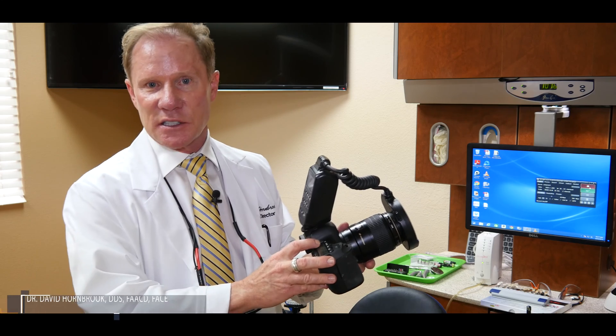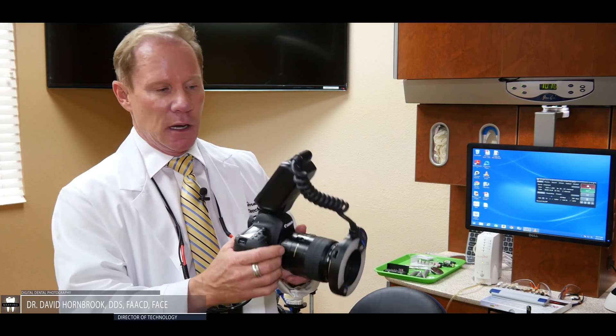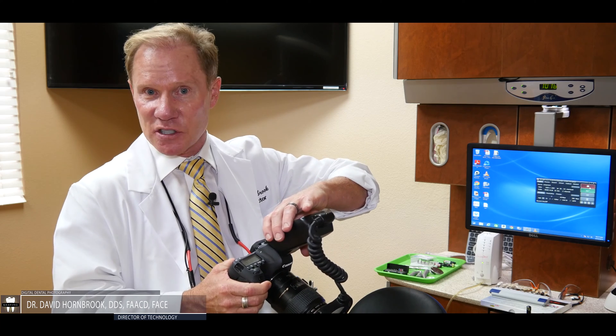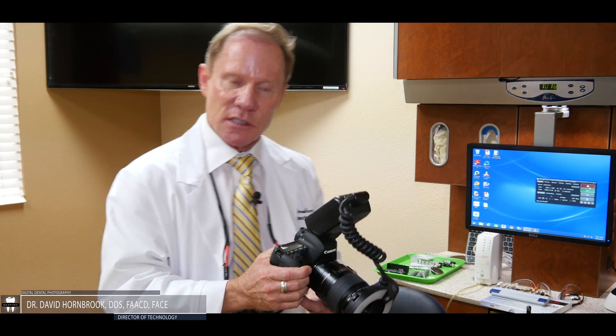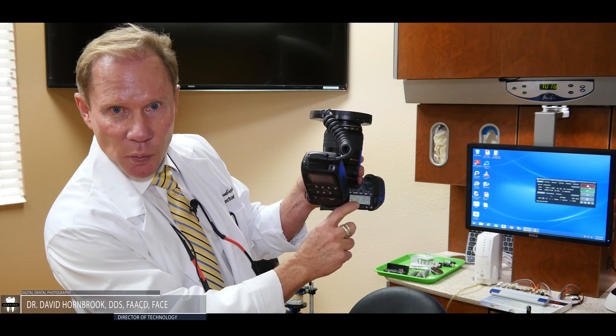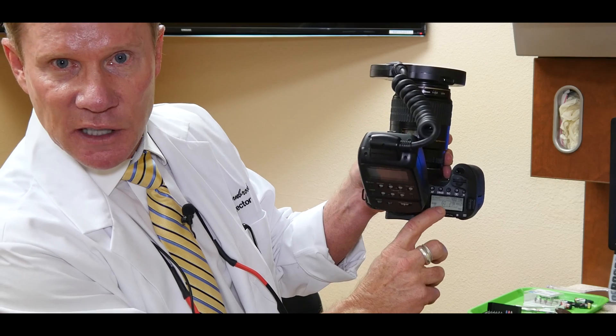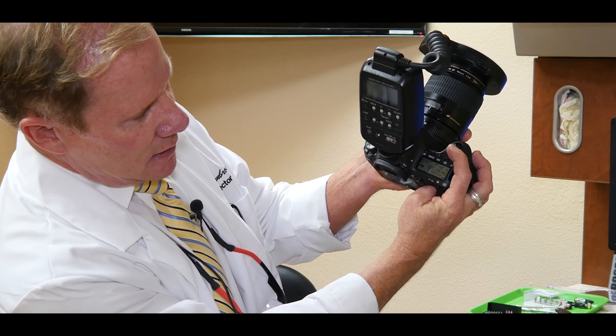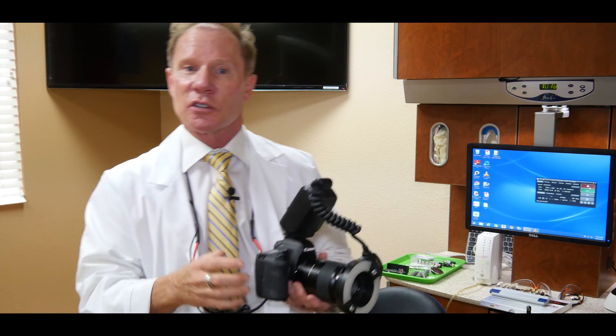The next major line item is shutter speed. I like to shoot mine at 60. The shutter speed will control how much light the flash is going to put out, so I want to make sure it's always the same and always consistent. On the Canon, this little control panel you can see the 60 — the way we change that is we just take this top dial and move it.